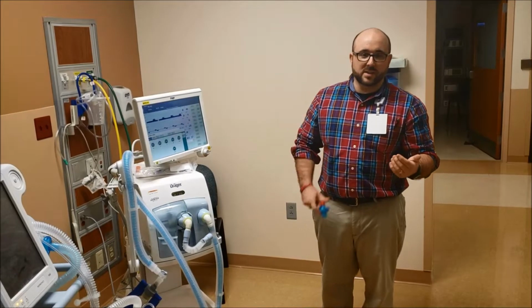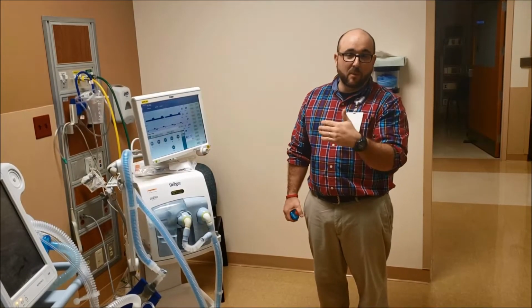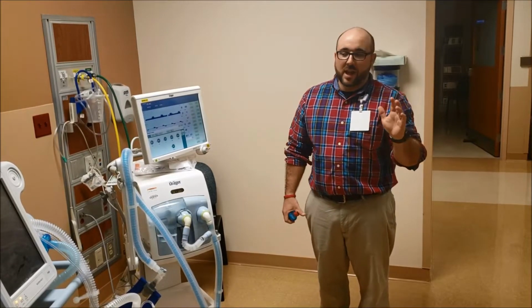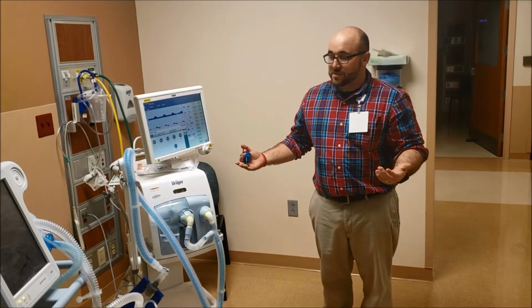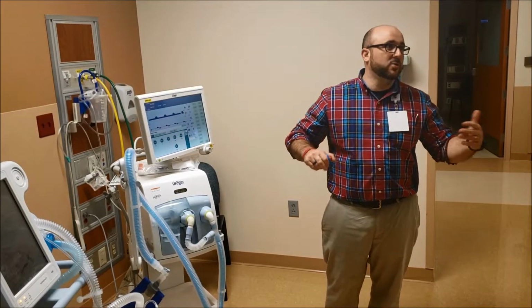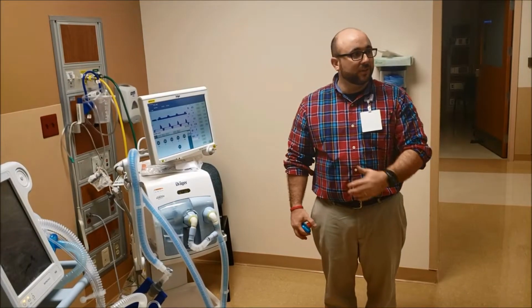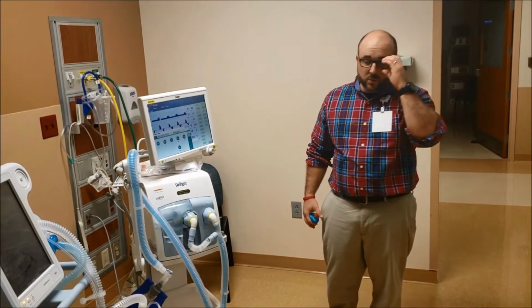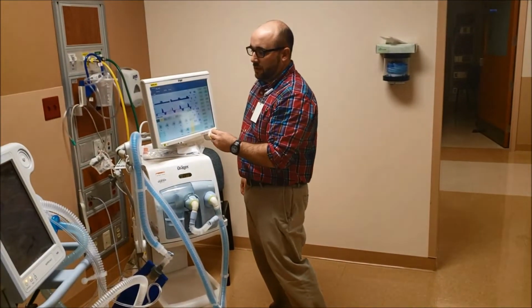In other words, we're going to give so many breaths per minute, and it's usually a minimum amount, like 10 or 12-ish. And then if they take their own breath, it's going to support their own breath. So if they want to breathe 24 times a minute, and you have a rate of 12 set, they're going to do 12 on their own, and it's going to give them 12 ventilator breaths. So it's kind of a weaning mode. You guys wean extremely fast over here, which is great. So SIMV will look like this.